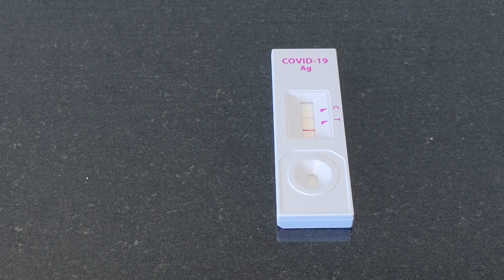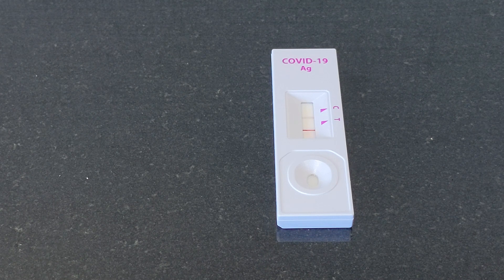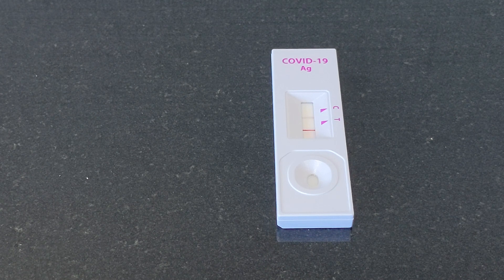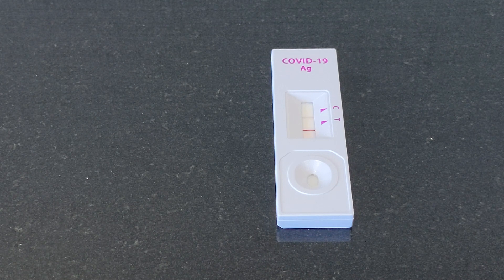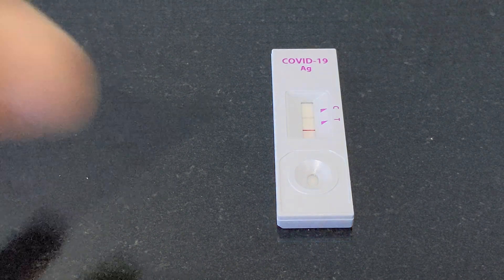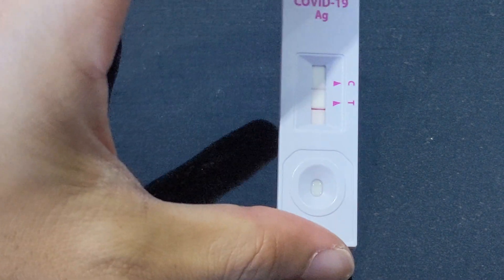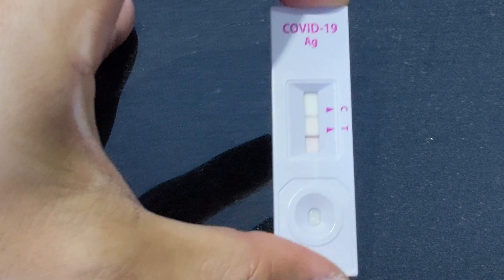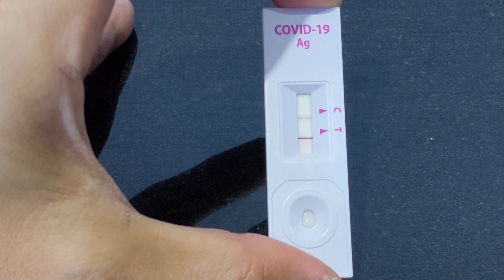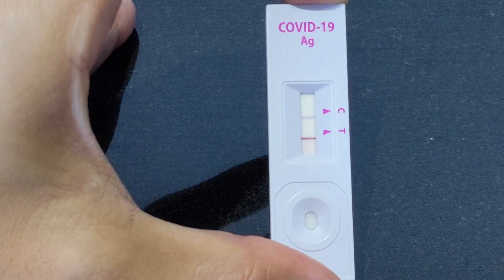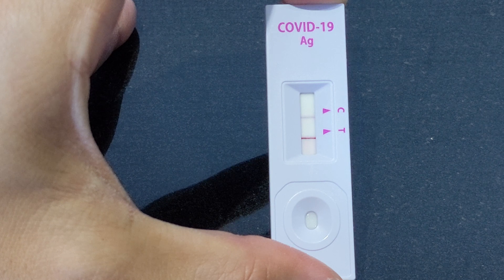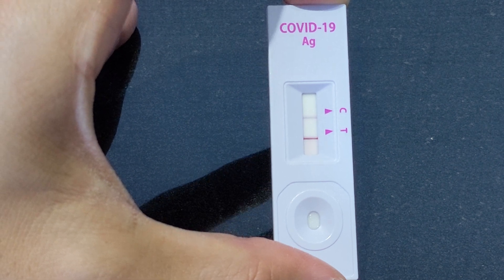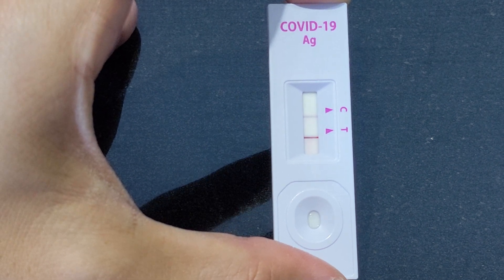And yeah, stay safe. Wear a mask. Wash your hands all the time. This is how you will get a test result from the ART swab kit if you are positive for COVID.